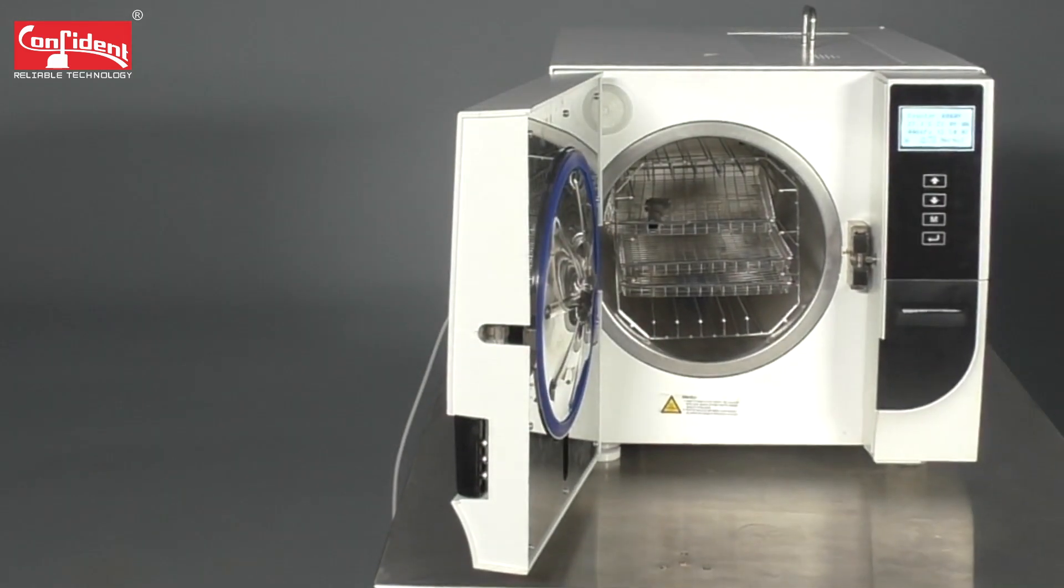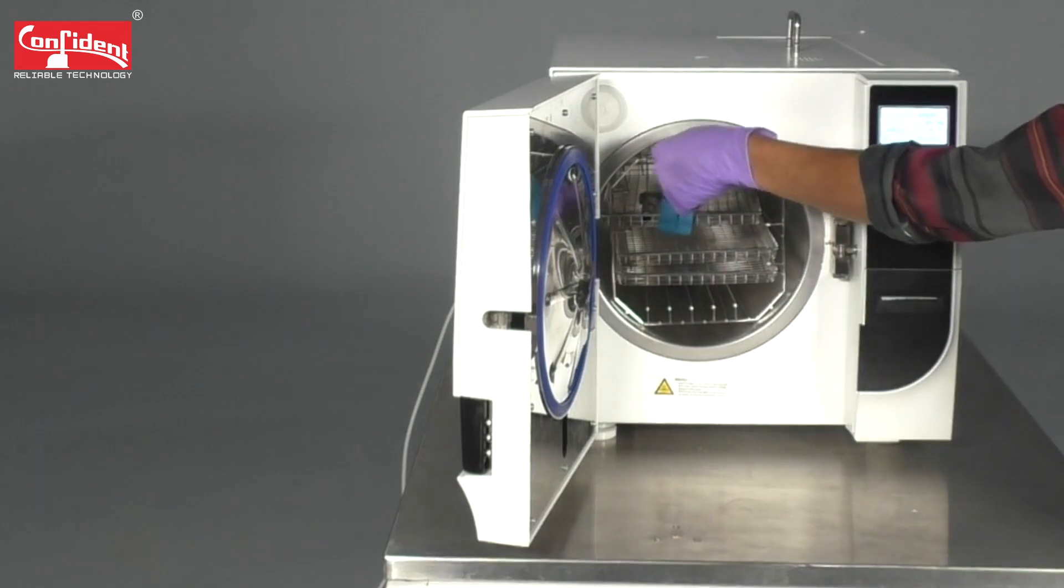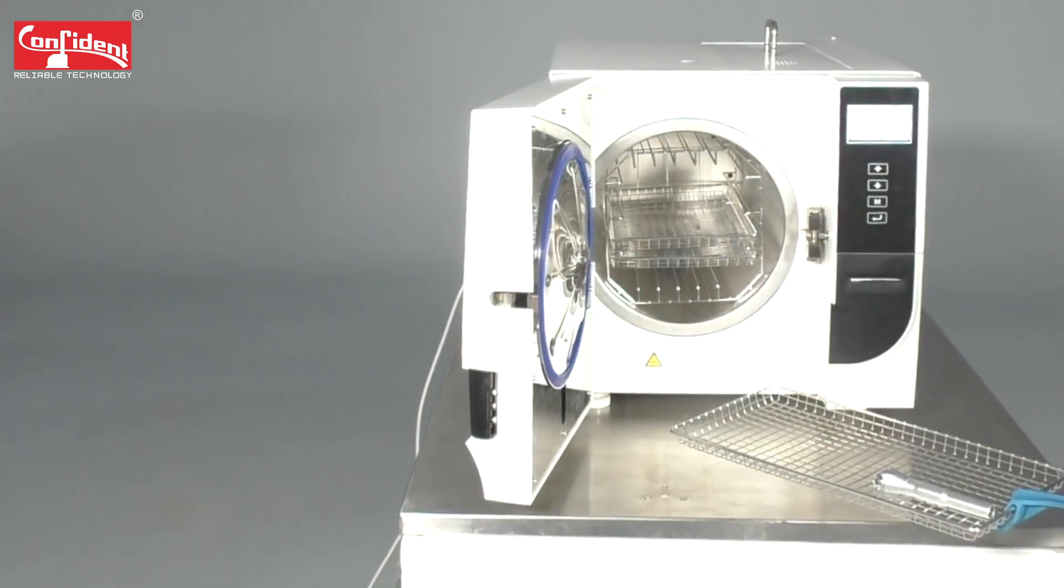Open the door. Remove the tray using a spatula. Now, your device is completely sterilized and ready to be used.